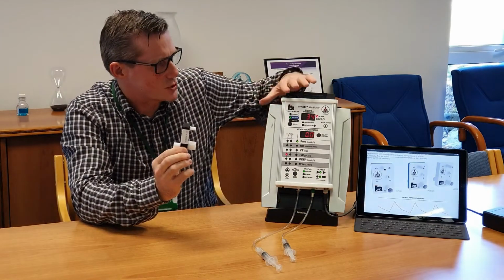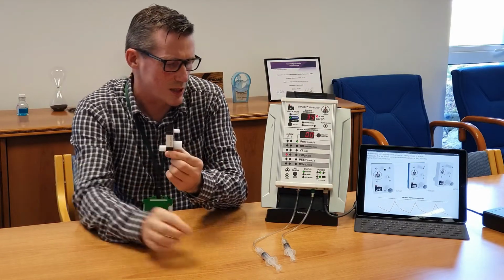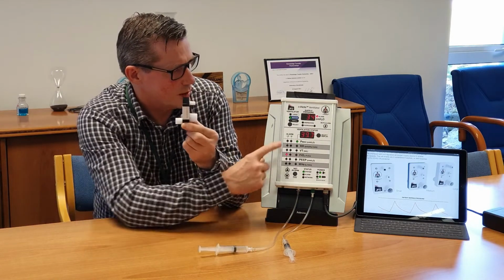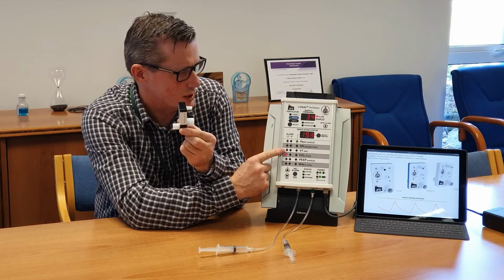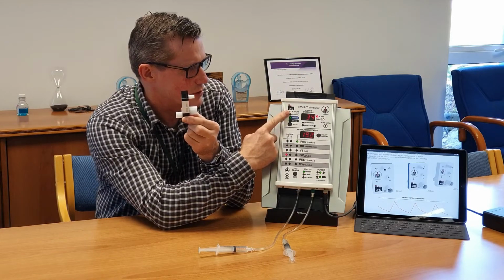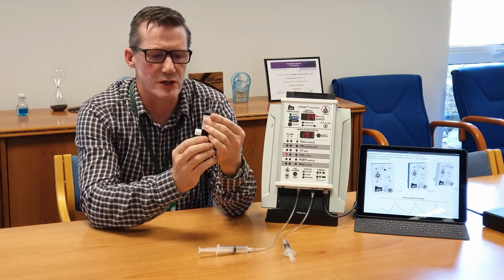A part of the system is this unit here, which is a monitoring and alarms panel, and it connects with a couple of pressure tubes to the supply and also to the patient. And that provides a reading of pressure maximum, respiratory rate, tidal volume, fractional oxygen, PEEP, and minute volume. We also have a reading here of the pressure display being fed to the ventilator itself. So it's very simple to use.